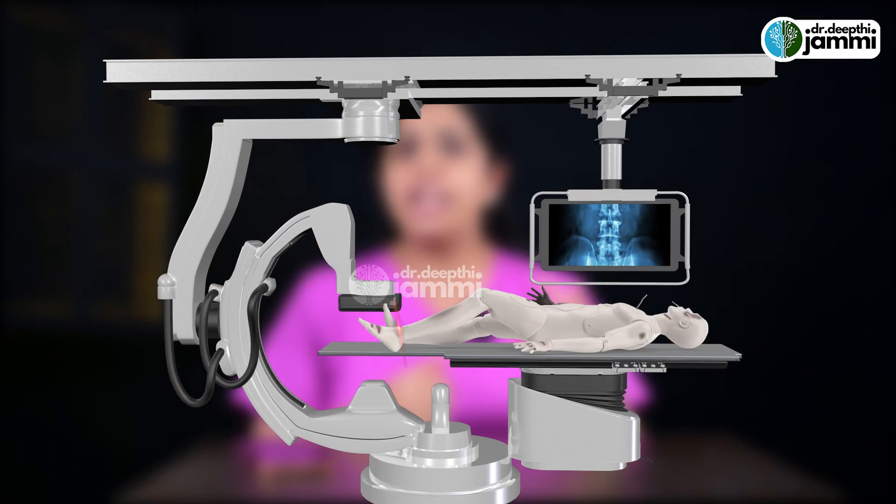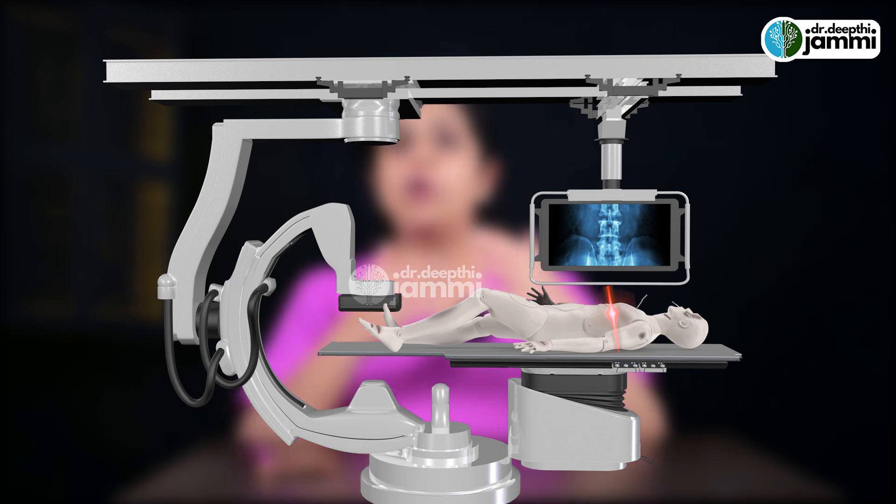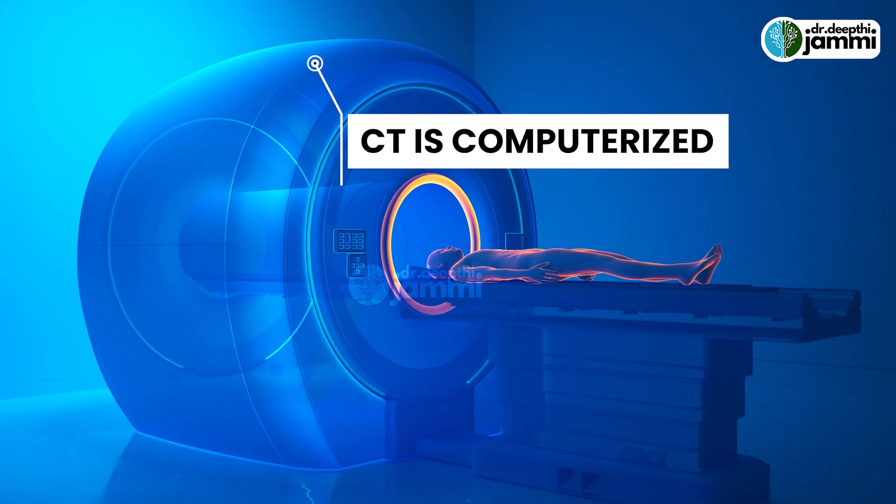X-ray and CT are two imaging modalities where we use radiation. The difference between CT and X-ray is that CT is computerized, so there is a heavier radiation dose and it gets a 360-degree view of the organs.